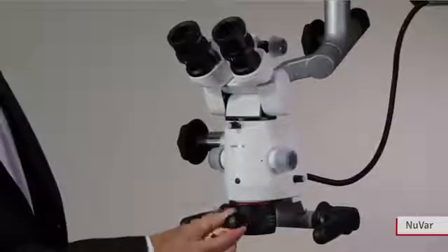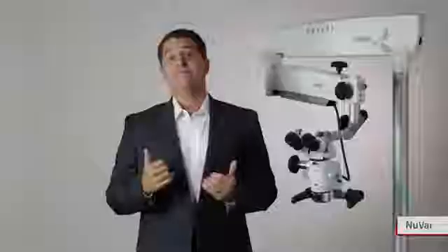The NuVAR is a variable working distance objective with focal length of 300 to 400 millimeters. Working distance is the distance between the microscope and the subject. Having variable focal length means less repositioning of the microscope when focusing on different regions of interest or when a patient moves.